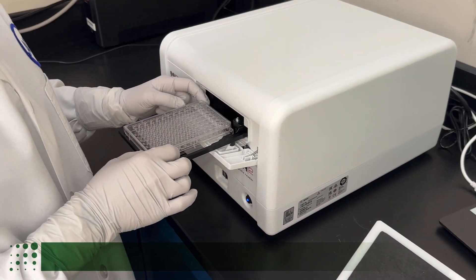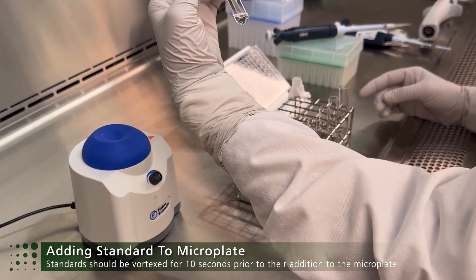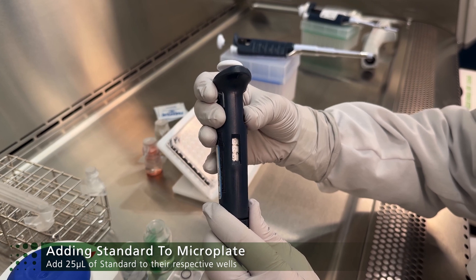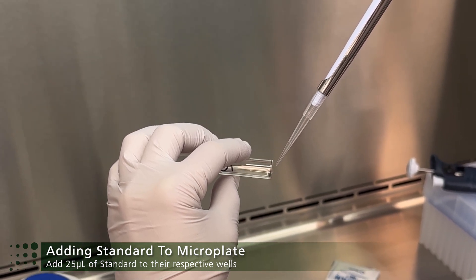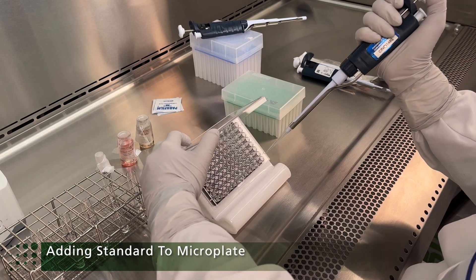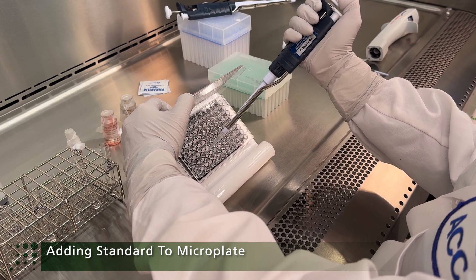At the end of incubation, retrieve the microplate from the reader. Slowly add 25 µl of each standard (tubes 1 to 5) to their respective wells, using the same technique as for serum samples. Add 25 µl of LRW from tube 6 to the negative control wells of the microplate.